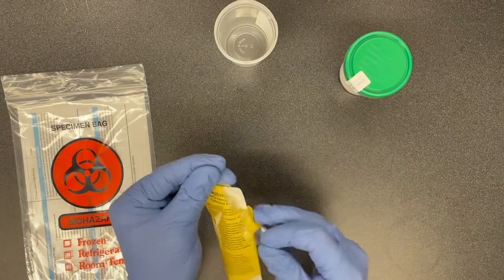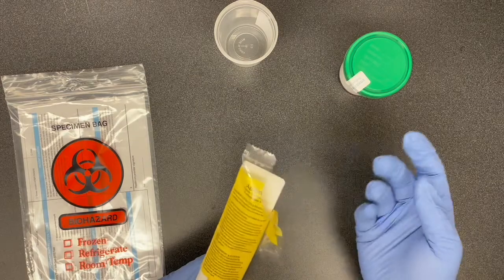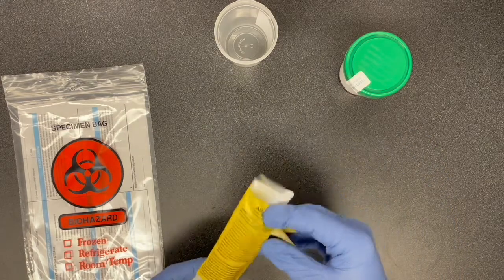So first, we're just going to open up our kit and leave the pipette in there for now. Keep it clean.